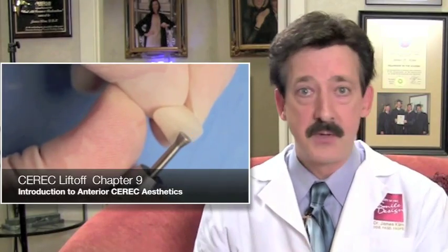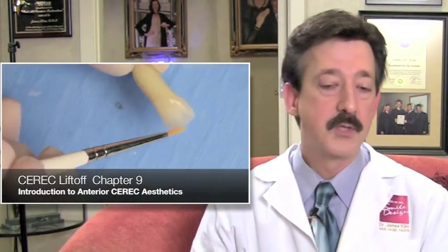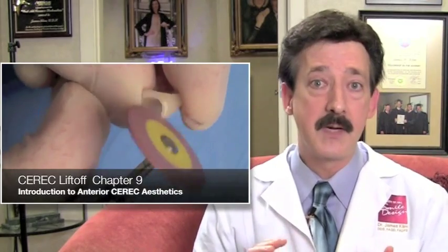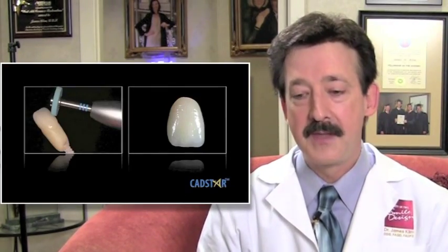For anterior teeth in Chapter 9, we have the same process — you can download the CDT file I'm designing so you can design along with me, and then I go through the finishing processes. Virtual design shouldn't be complex; if anything, it should be easy. The CEREC Liftoff online training and mentoring is excellent for your team if you want them to take more responsibility in the design process.